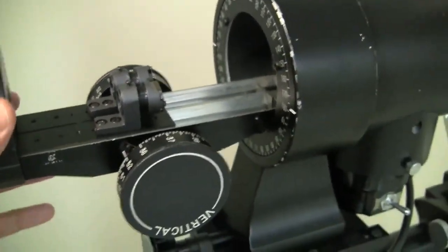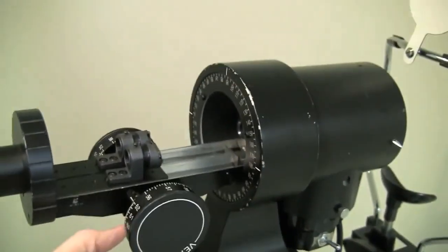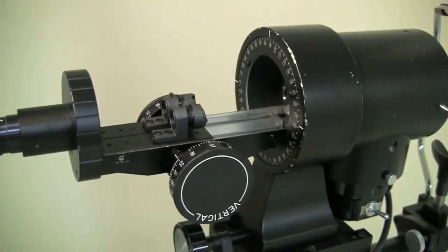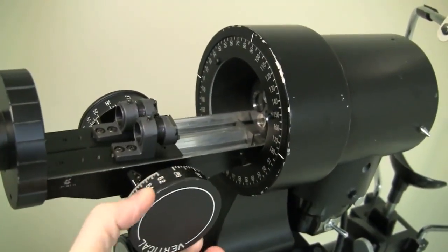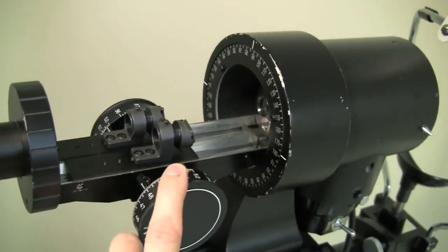So the keratometer is a pretty complicated instrument in terms of what it does, but its mechanism is actually fairly simple to understand. So we will get more into this in class again and some PowerPoint notes about the function of the instrument, but I wanted you to at least see what the inside looks like, and what you're actually doing when you're turning the knobs is moving these prisms back and forth, either closer to the patient or farther away from the patient.